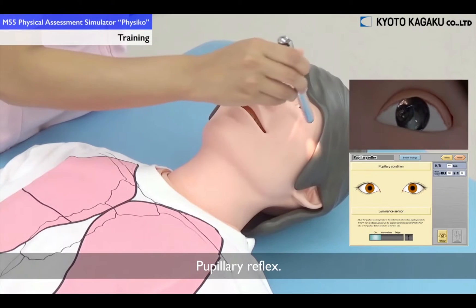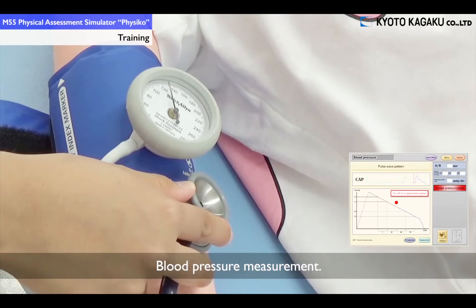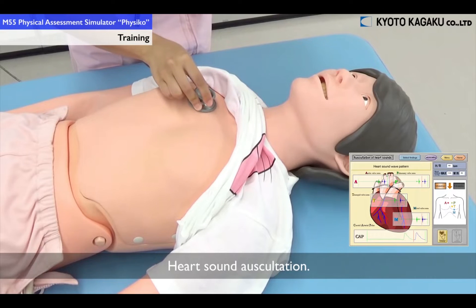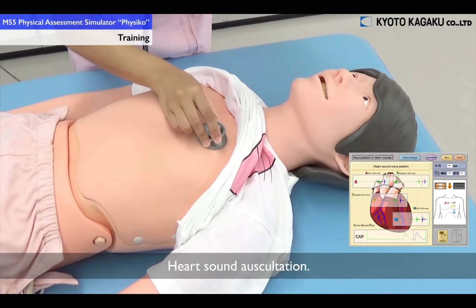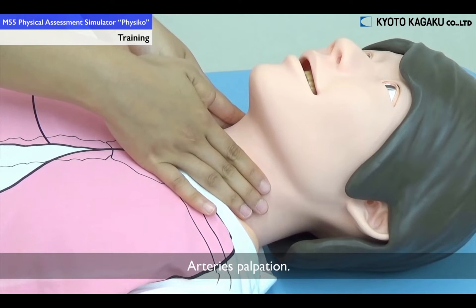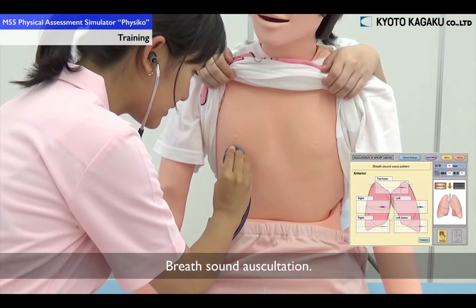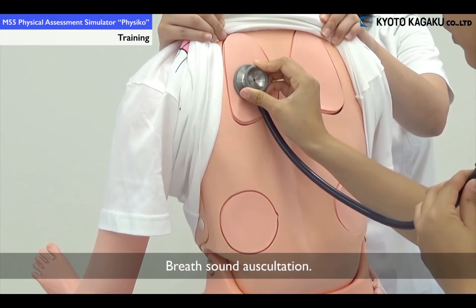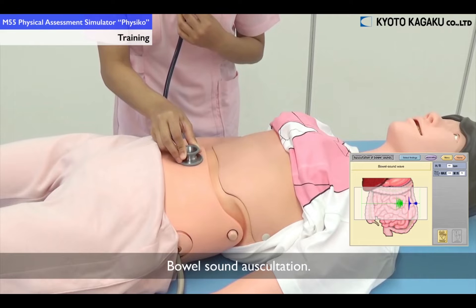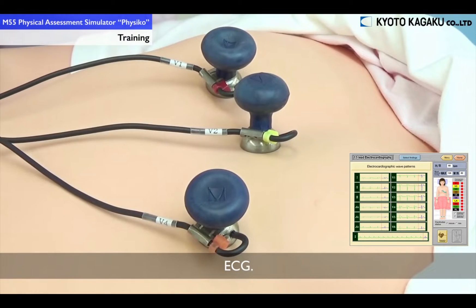These skills include checking pupillary reflex, taking blood pressure, listening to heart sounds, checking pulses, listening to lung sounds, listening to bowel sounds, and taking an ECG.